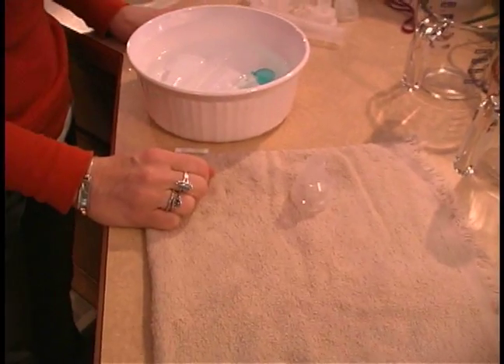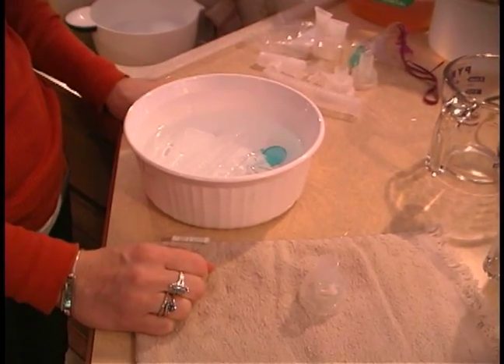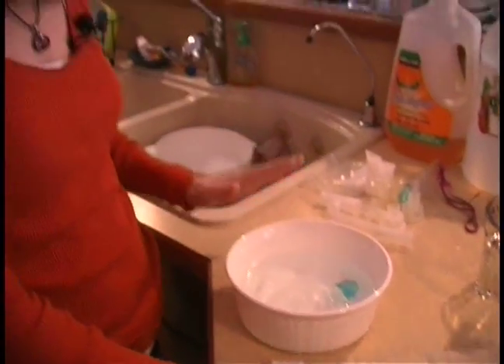You do not want to put this equipment in a dishwasher. You can read the specific recommendations for the parts that you're using, but in general the dishwasher is going to be a bit too harsh.